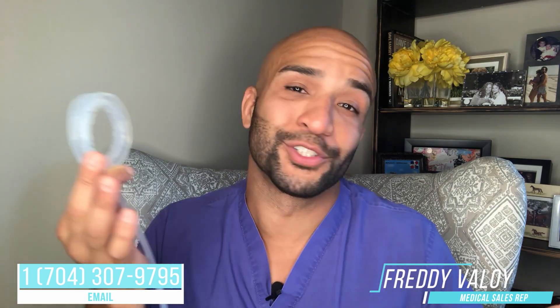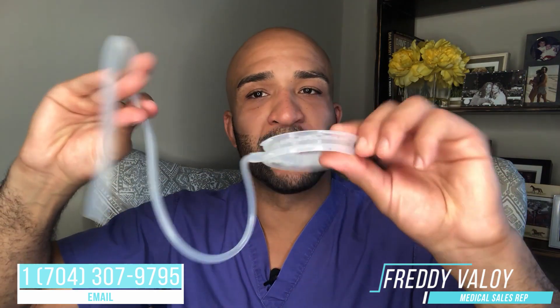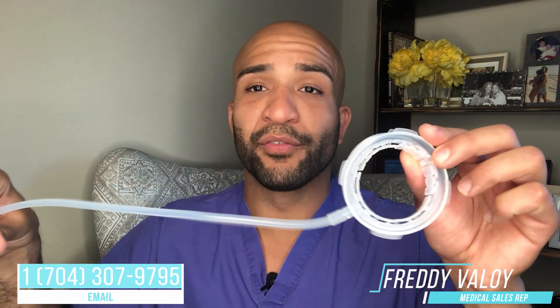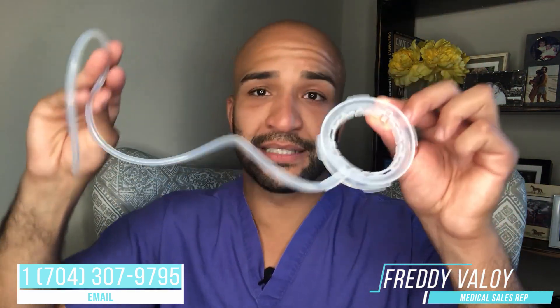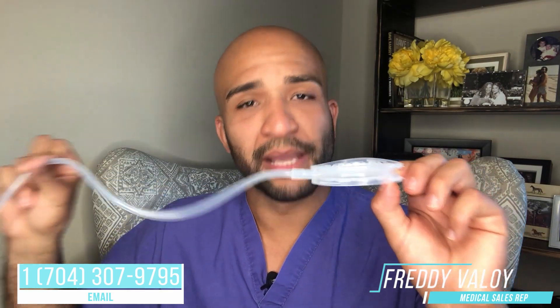This thing is really, really cool. It's been crushing it all over the world, and now we're one of the first distributors in the US to get it — yay. Would love to meet with you either via Zoom or at the hospital before a case, so you can get this bad boy in your hand and feel it for yourself. Super soft. We have various studies showing that it does not damage the liver. You want to be the cool kid on the block — this is going to be a thing here and it's going to make things easier for you.